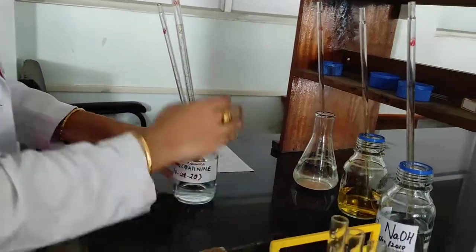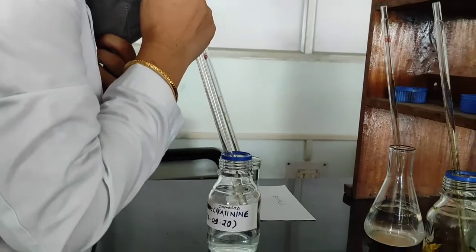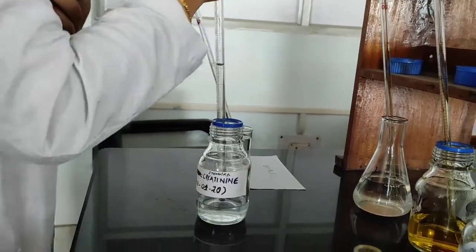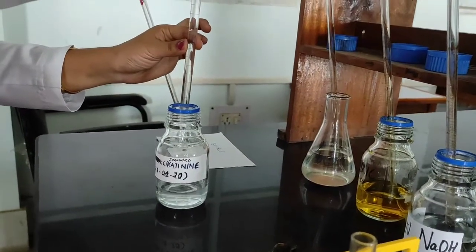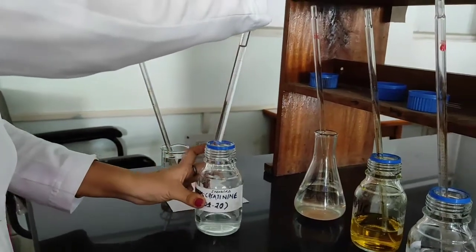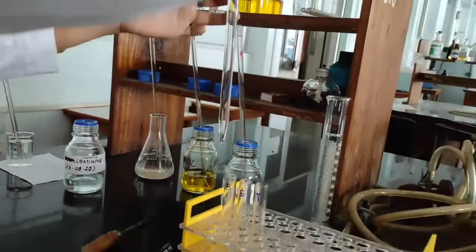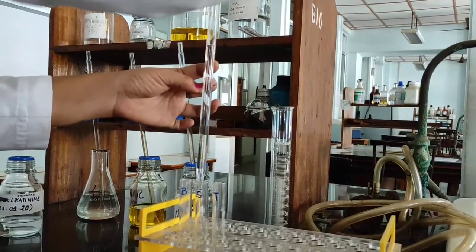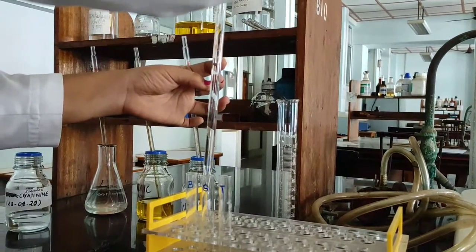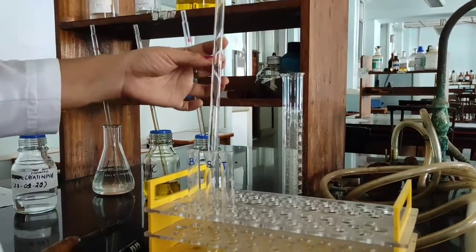The next one is the standard creatinine or the working creatinine. Like in case of the sample, I will be taking 3 ml in the test tube labeled as standard. This is it.